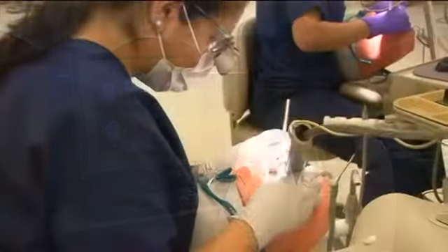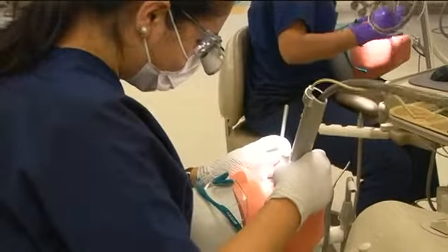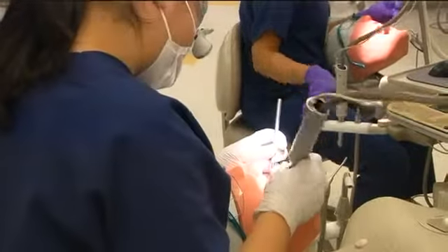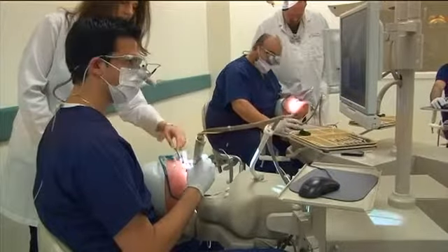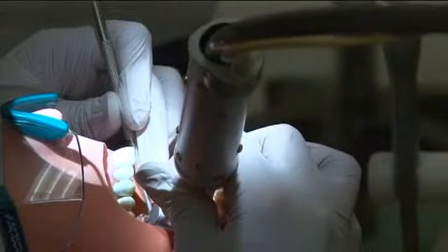DentSim helps students get to a certain level of performance a little bit faster, or a lot faster, and with less faculty supervision. So in terms of curriculum design, if you want to get to a certain level of student performance, then you should definitely use that and change the other things that you do in the curriculum to advance the students faster in other aspects. Instead of using, let's say, a year to get to a certain level, you can get to the same level in 3 months.